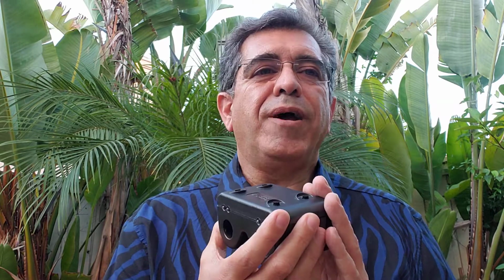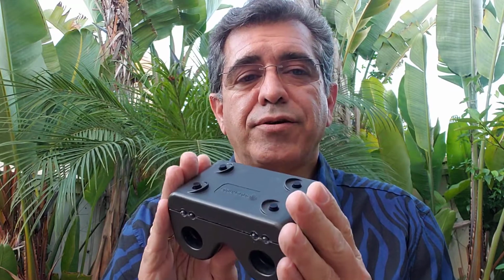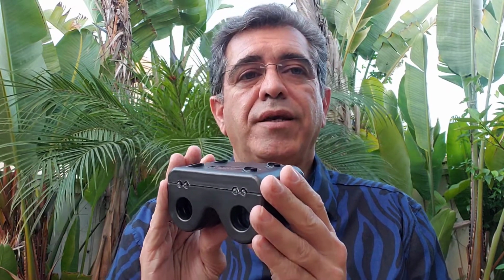So I use this device on all my patients. It makes me feel confident about my pupil testing. The website apdtester.com directs you to the two versions of this device. One version is a detector of APD, and the other has the capability to detect as well as quantify the APDs. Thank you very much for your attention.